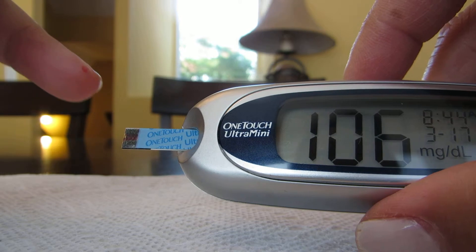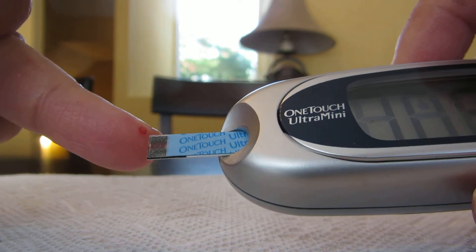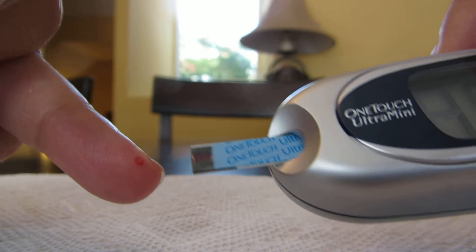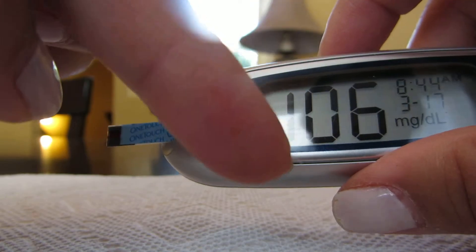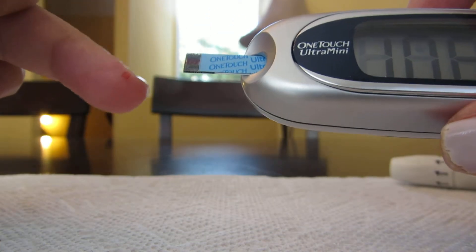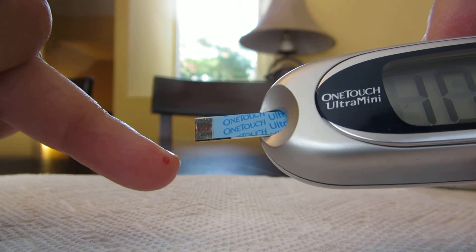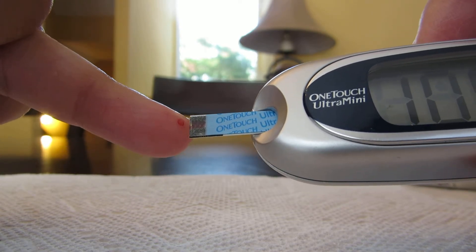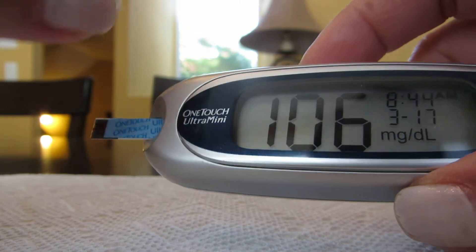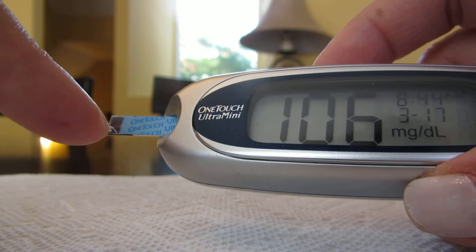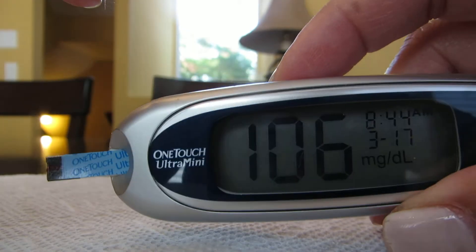Don't have a flow of blood on your finger—too much blood will overwhelm the strip and you won't get a proper reading. Notice I only touched the top of the strip onto the edge of the blood blotch, and then the blood is automatically drawn into the monitor. We just wait for it to stop and it gives you a proper readout.